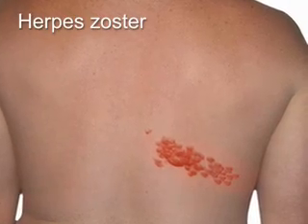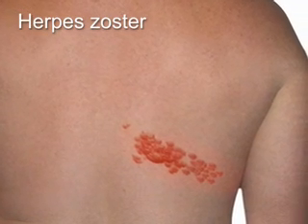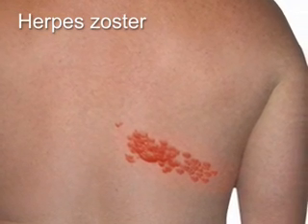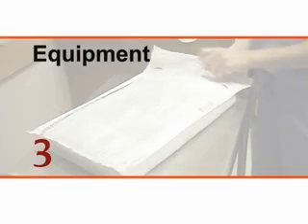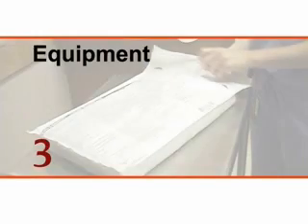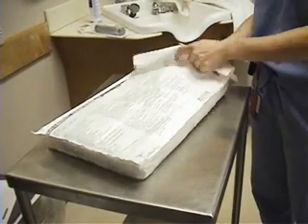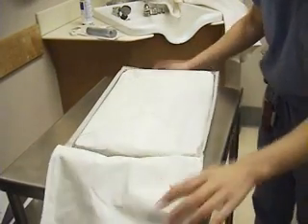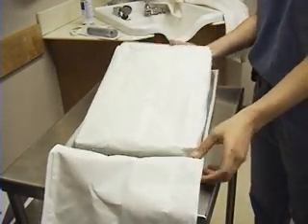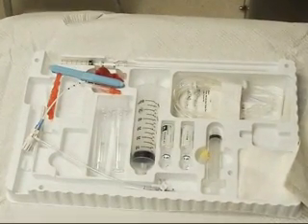The thoracentesis needle should not pass through sites of cutaneous infection such as cellulitis or herpes zoster. Numerous devices, which are frequently available in prepackaged kits, can be used to perform thoracentesis. You should become familiar with the specific devices available at your institution.